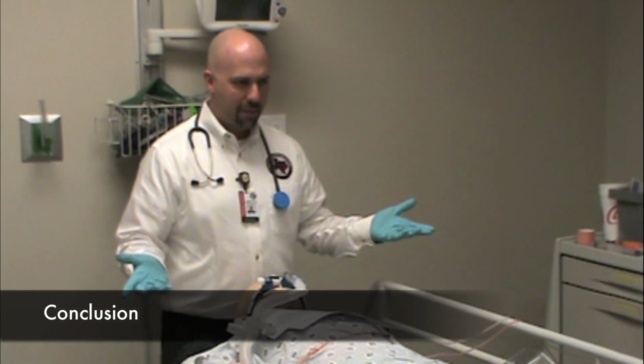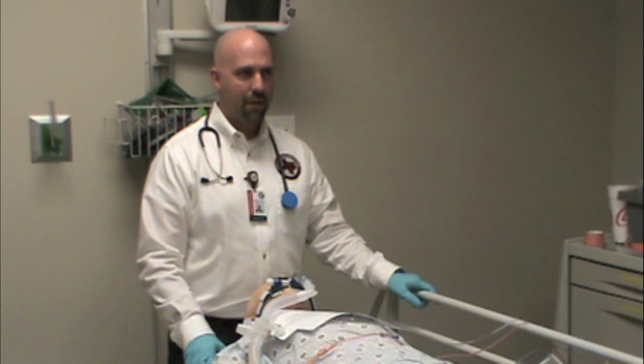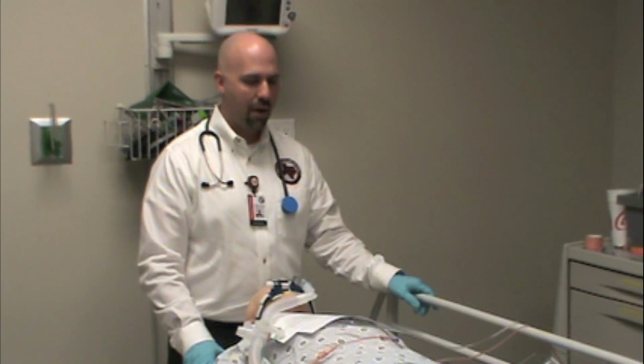So this is some of the basics of mechanical ventilation with your Eagle Uni-Vent ventilator. If you have any questions, feel free to email the Clinical Services Department and we'll be happy to offer you additional training.